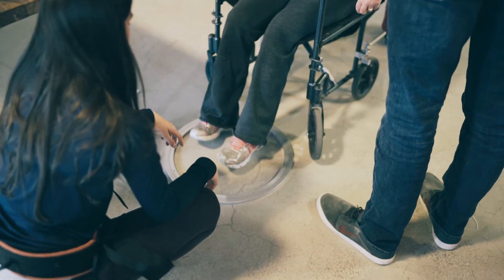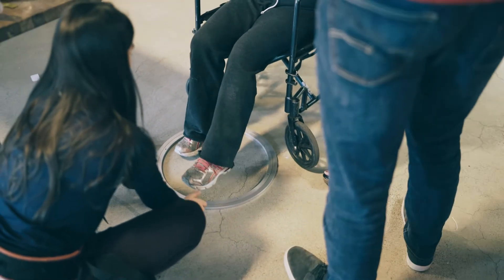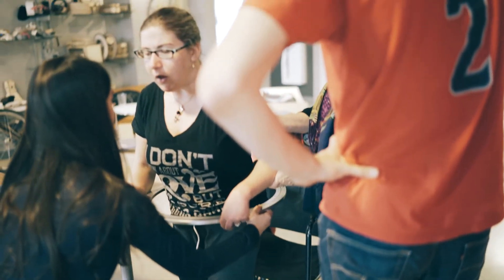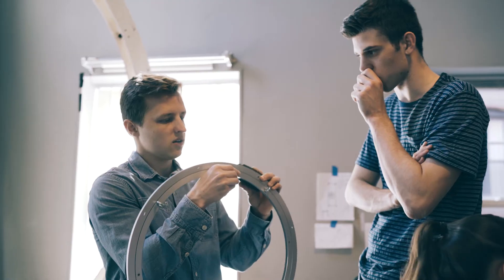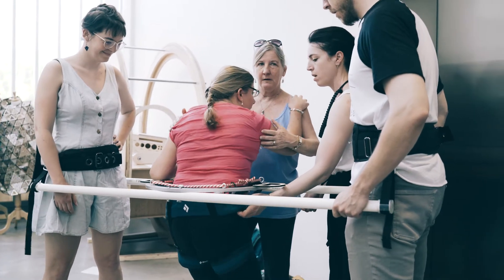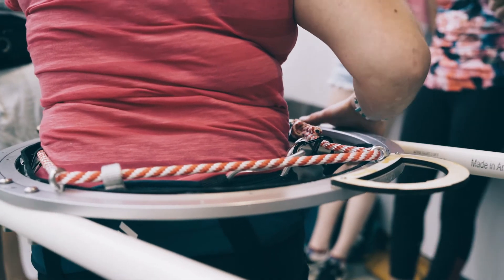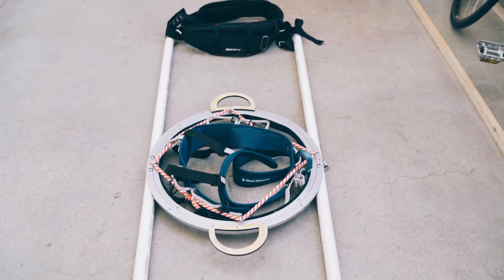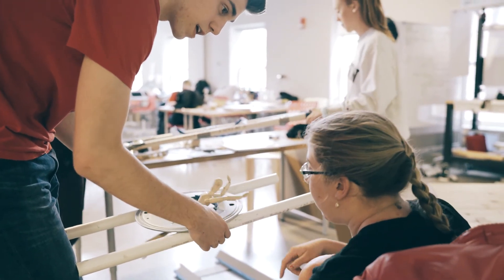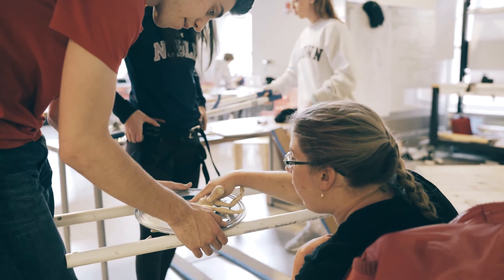You could step into the hoop, and then pull it up. When you're getting out of your wheelchair, it'll be on the ground, so when you go to stand up, you'll already be in it. To best give dancing back to her, we made a device that could allow her to dance and stabilize herself with the help of her siblings while maintaining upper body movement. The basis of it is a Lazy Susan rotating disc with two sliding pipes, so she can choose what orientation and direction she wants to be in, while also maintaining stability with handles and a bungee cord harness.